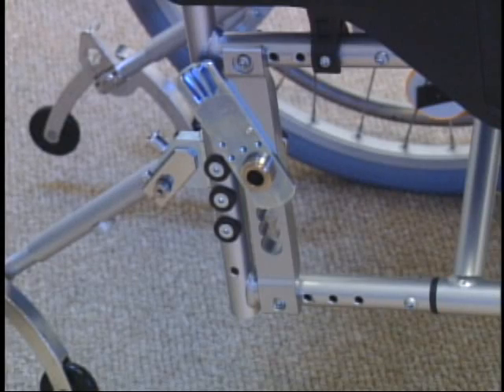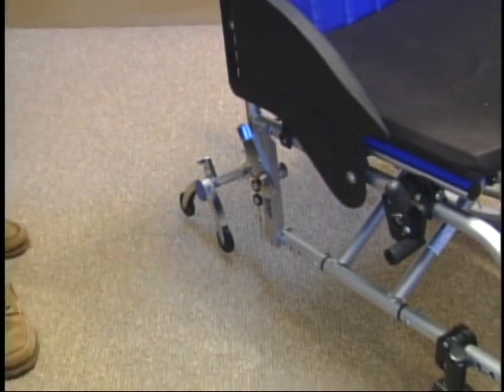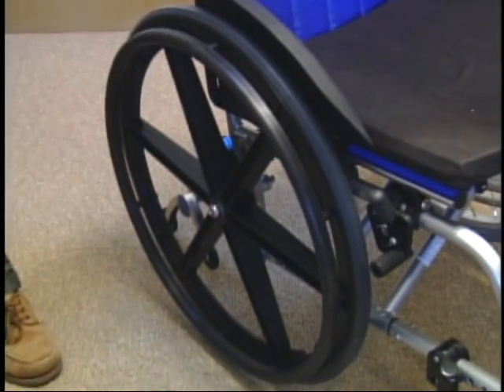Brackets are available for just about any manual wheelchair on the market. This simple device is lightweight and portable. Emotion wheels are quick-release — unfold the quick-release lever and pull the wheel sideways to remove it for easy transportation. Existing manual wheels remain interchangeable with the Emotion wheels.